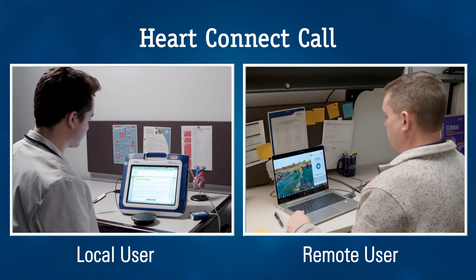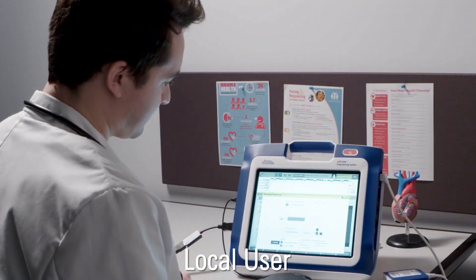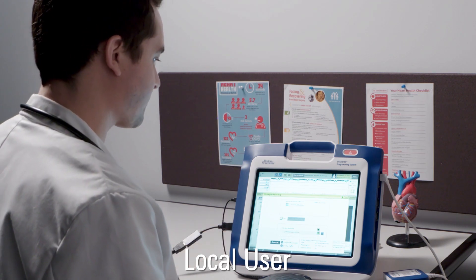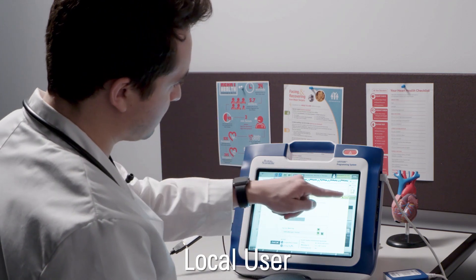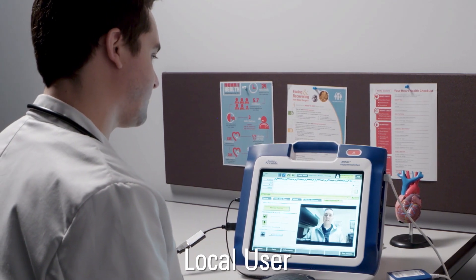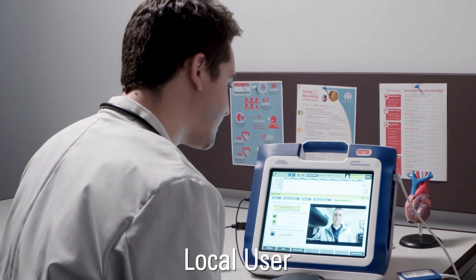Two users are needed for a successful HeartConnect call: local and remote. Local users are healthcare professionals who are currently with the patient and using the Model 3300 programmer. The HeartConnect app needs to be installed and registered. Only the local users can initiate the online meeting and share the video display. All local users must be capable of using the programmer correctly and meet the level of proficiency for the programmer's intended purpose.